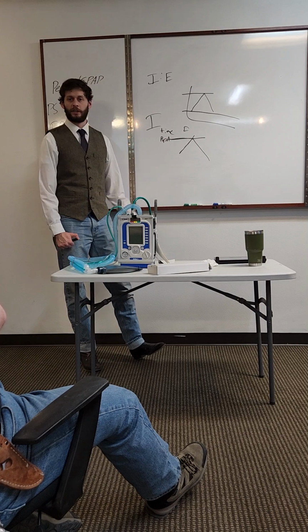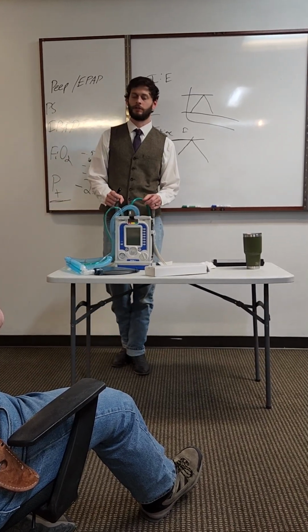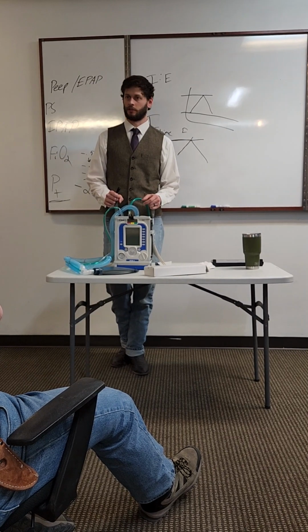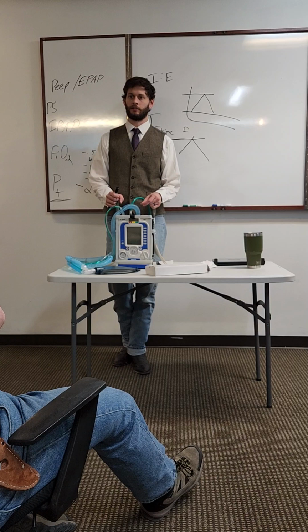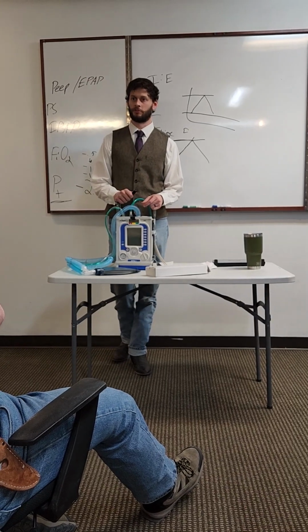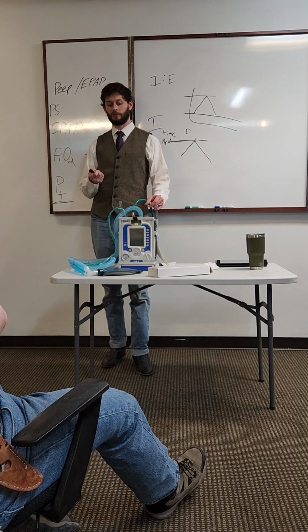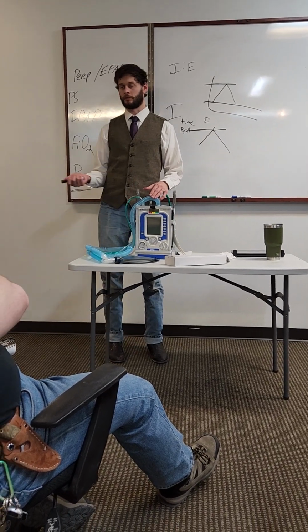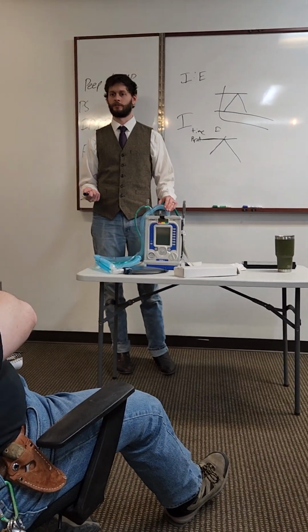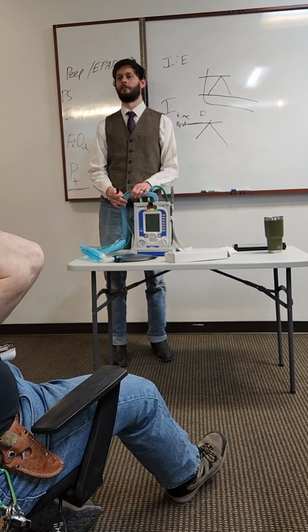But with pressure control, it's something I think I've used maybe 3 times. Everything else has been straight up volume control, especially with us, because we're not going to be doing a whole lot of pediatric patients with children's service being here. But if you do have a pediatric patient, a lot of times you're going to need the pediatric circuit. The reason you need the circuit, be like, well, if we can do pressure, why are you worried about the circuit? Because this circuit is made for tidal volumes greater than 300.